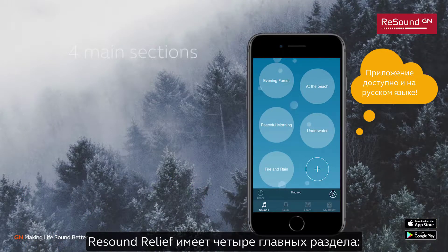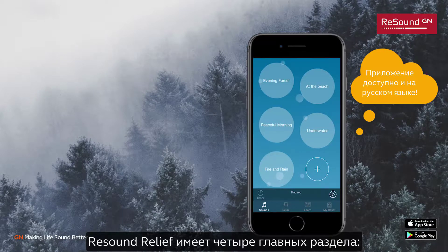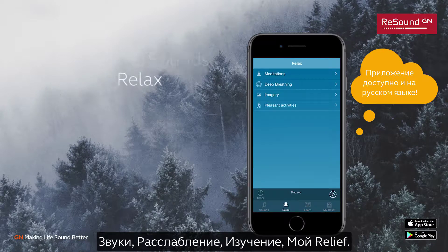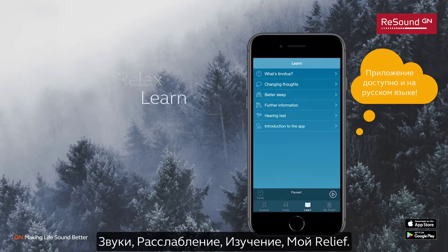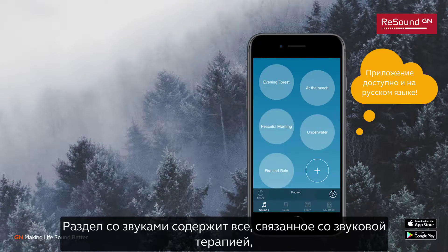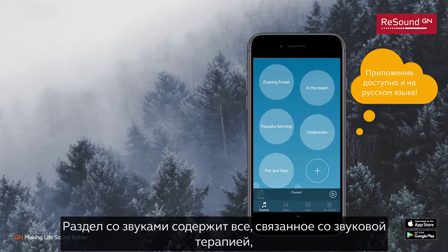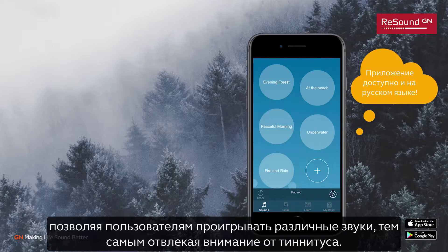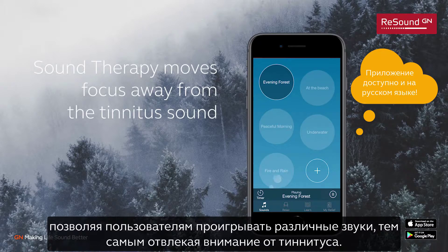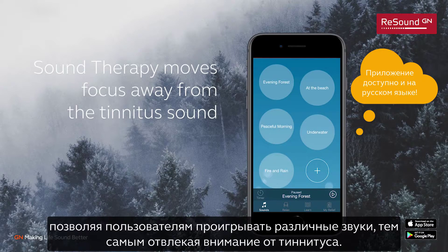ReSound Relief is divided into four main sections: Sounds, Relax, Learn, and My Relief. The Sounds section contains everything related to sound therapy, allowing users to play different sounds and thereby moving their focus away from the tinnitus sound.